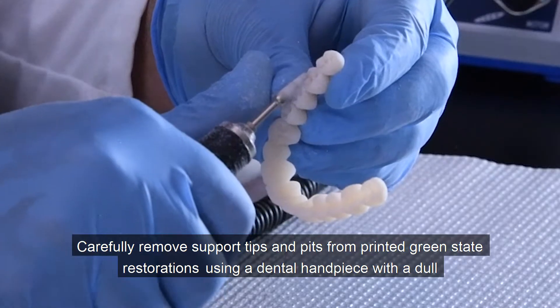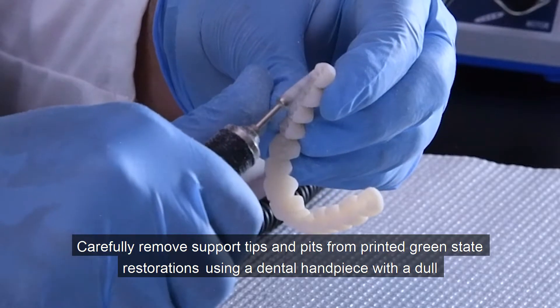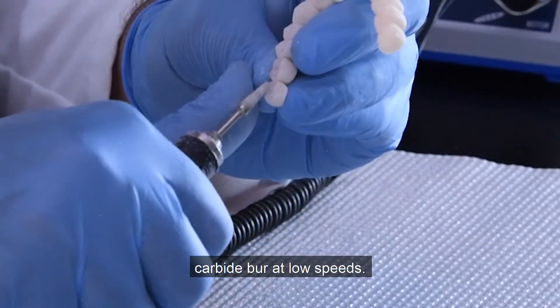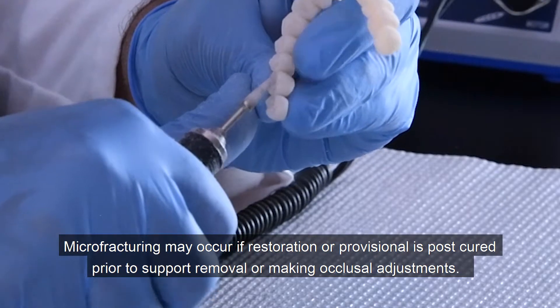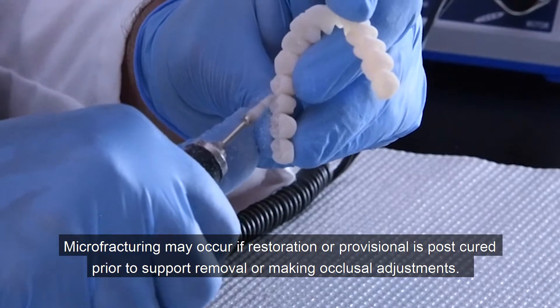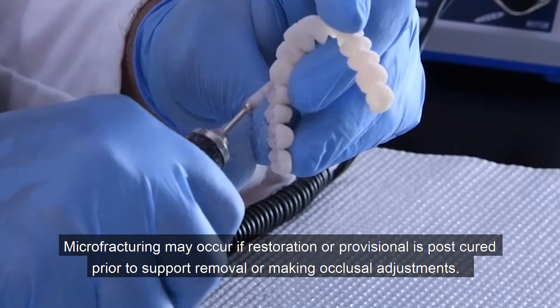Carefully remove support tips and pits from printed green-state restorations using a dental handpiece with a dull carbide bur at low speeds. Micro-fracturing may occur if the restoration or provisional is post-cured prior to support removal or making occlusal adjustments.